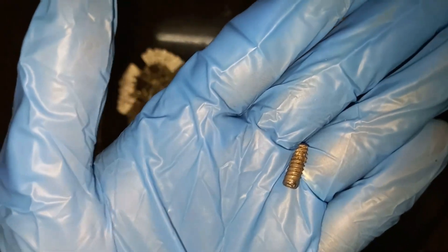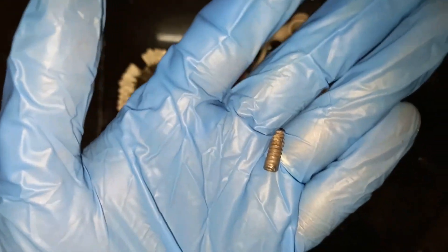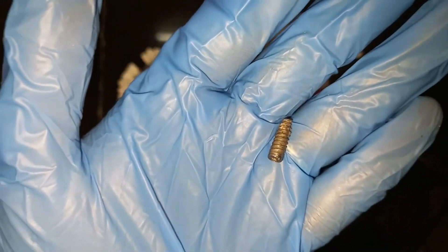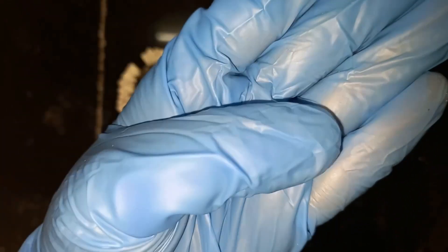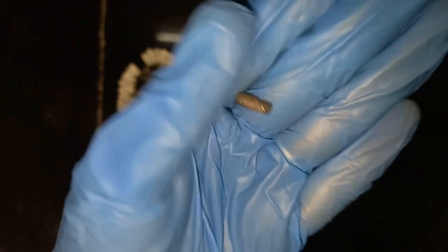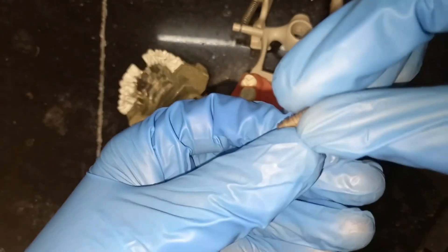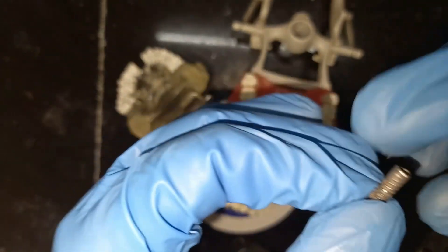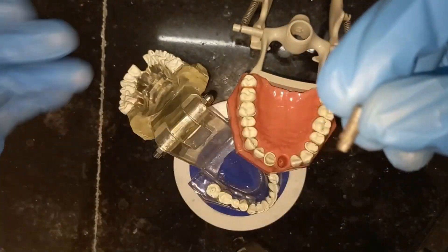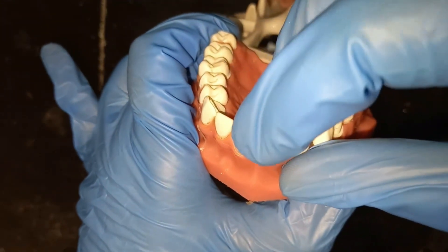It will act as a root. In the mandible we'll leave it for three months, and in the maxilla for six months, to osseointegrate. After that period, we'll expose the implant and then give the prosthesis.